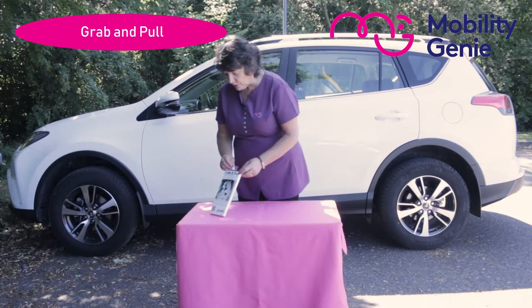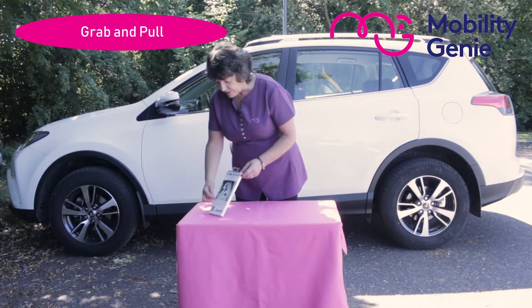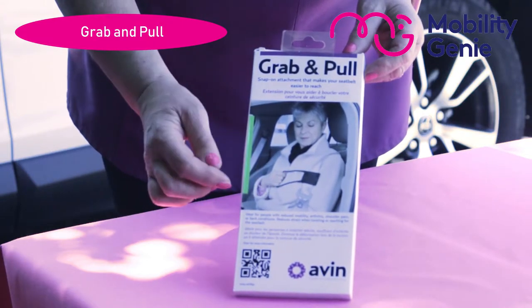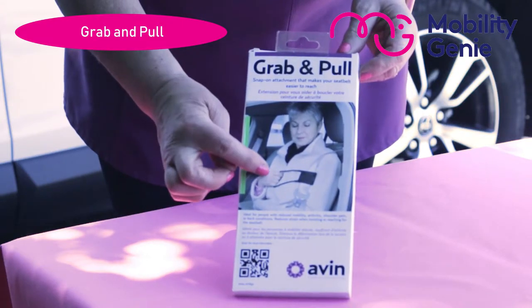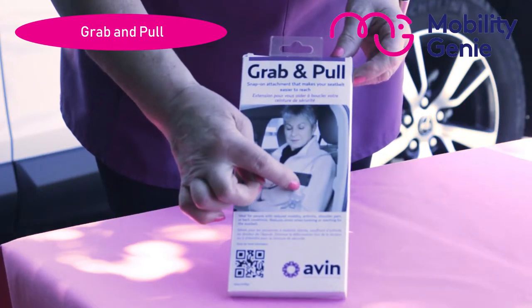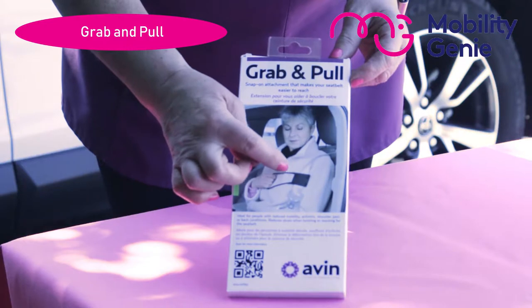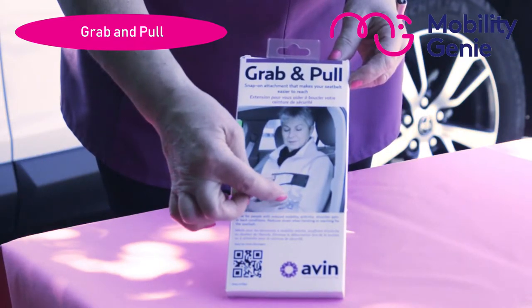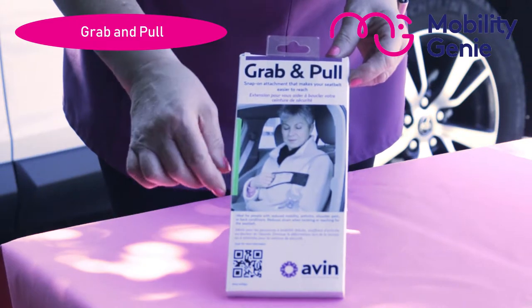For the purpose of the video I'm going to show you the picture at the front of the box. Here you have the looped handle that she's holding with her right hand, because she can't stretch her right hand far enough to reach the belt. The looped handle is attached to the belt so that when she pulls it, it allows her to grab the buckle and just lock the buckle in place.